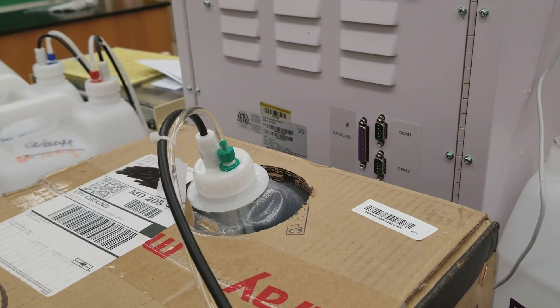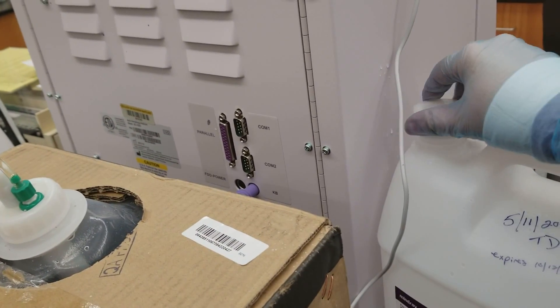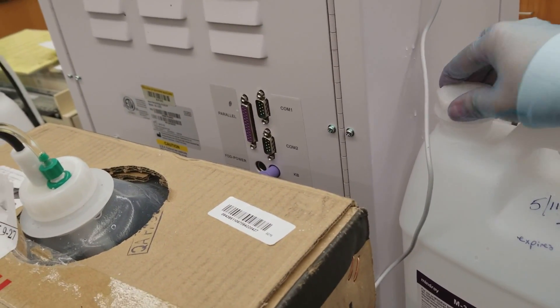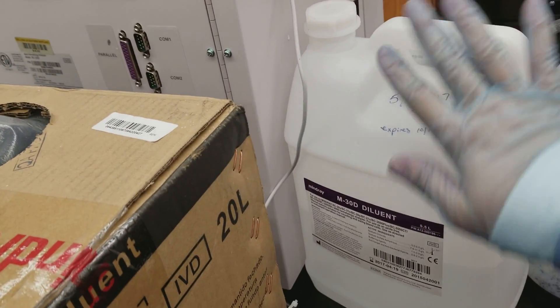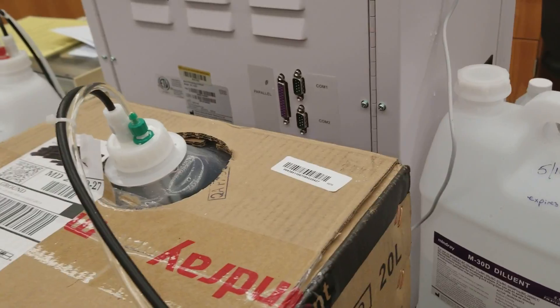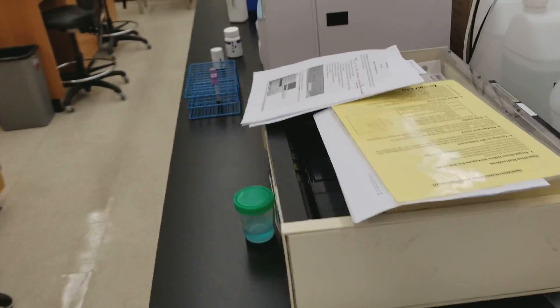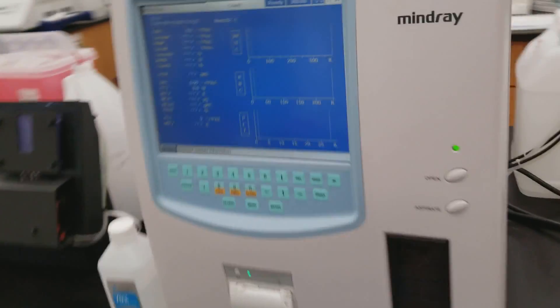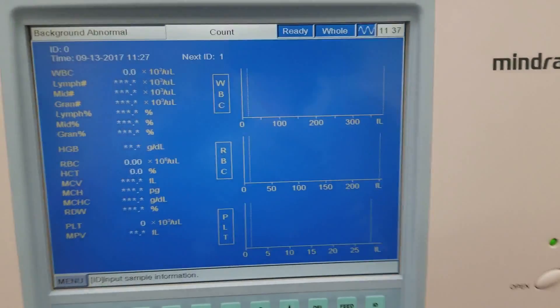Okay, so I did that. I can put this cap on for now. We'll get rid of the extra diluent appropriately, and then we will end up going ahead and using that bottle later for the waste, you know how we talked about moving it over.